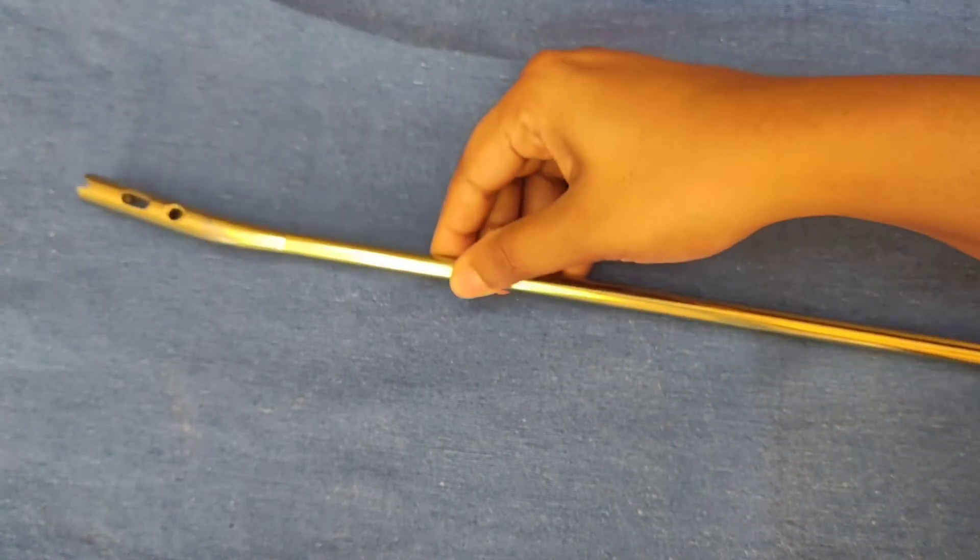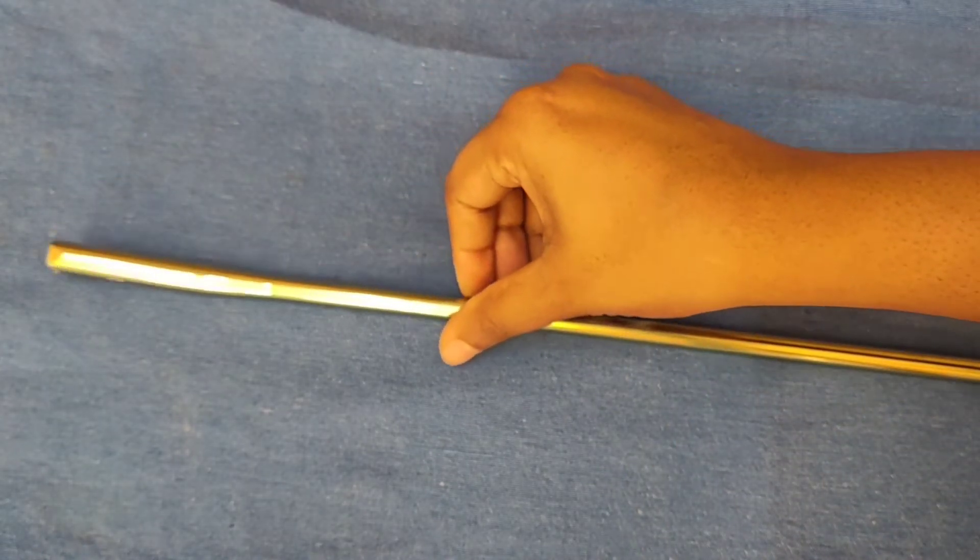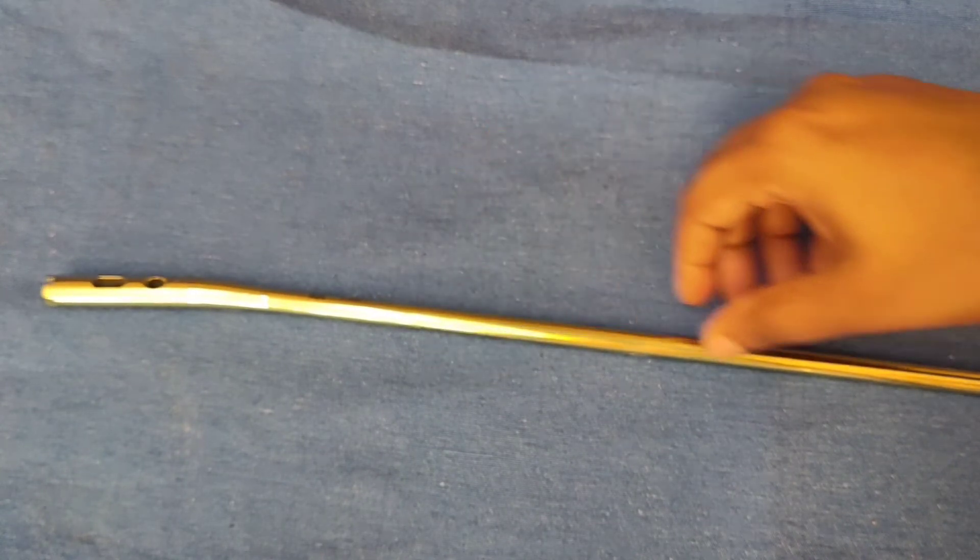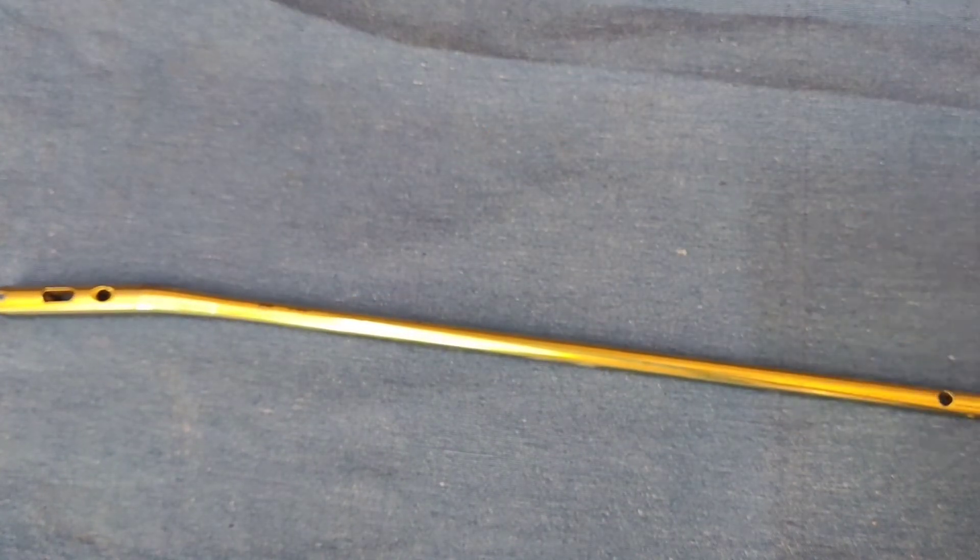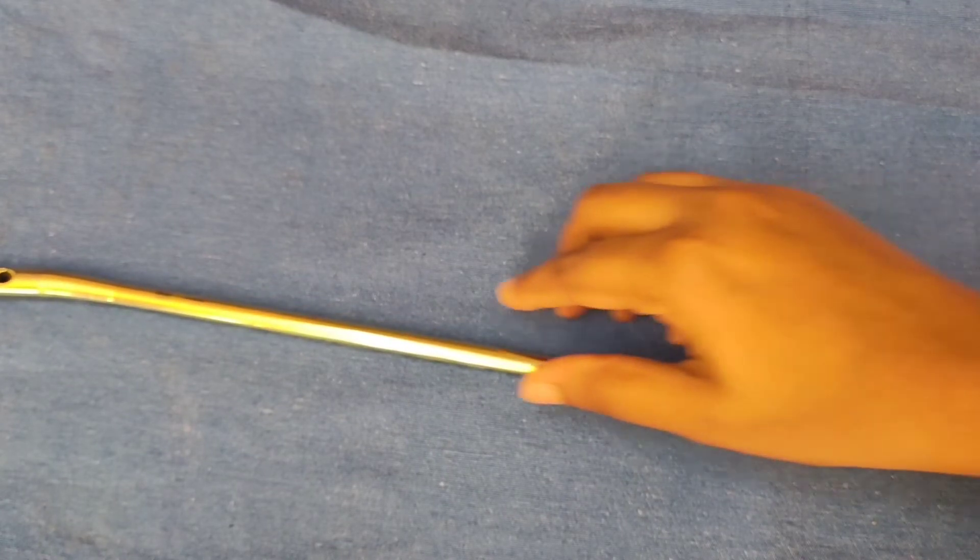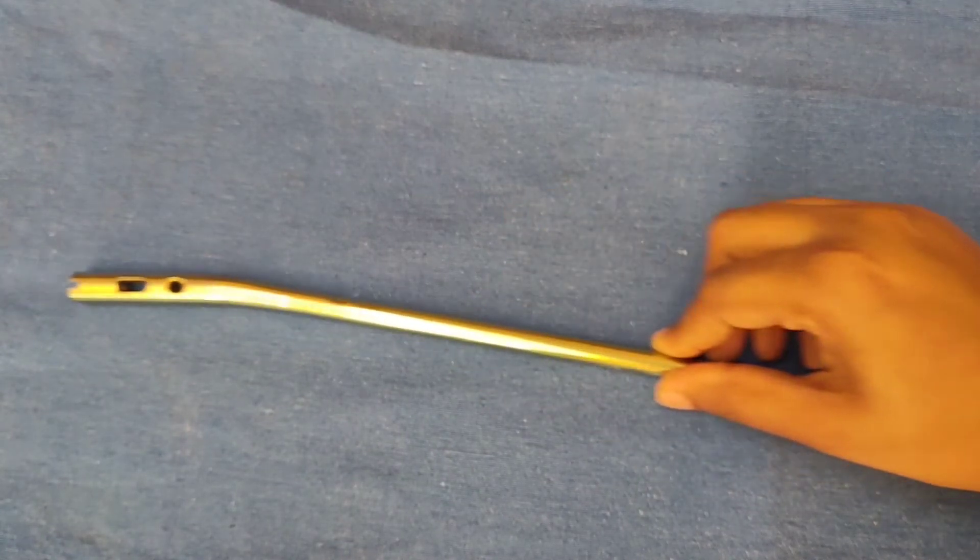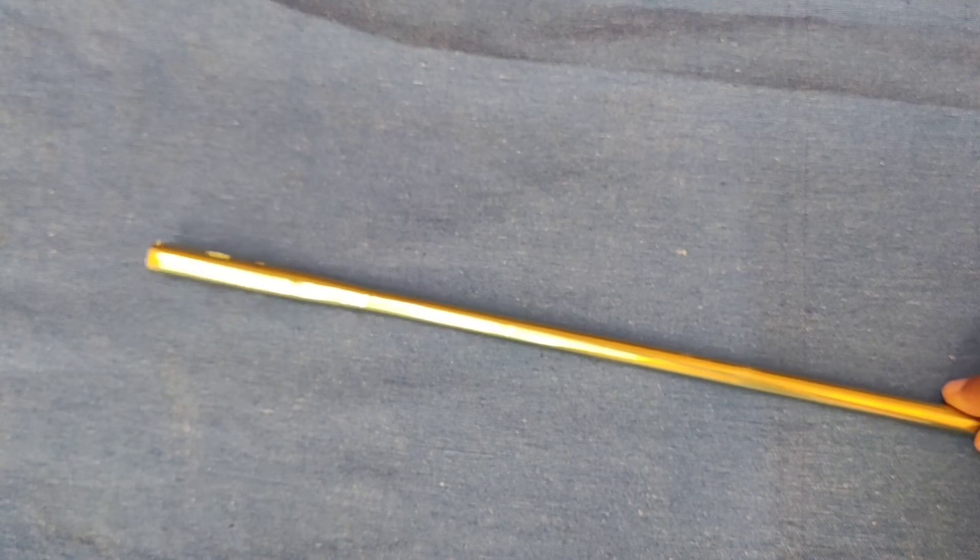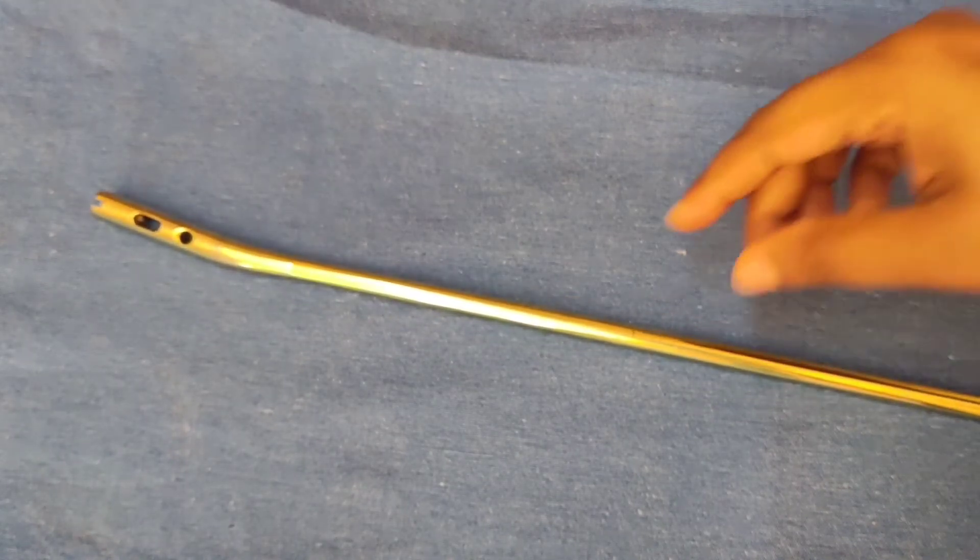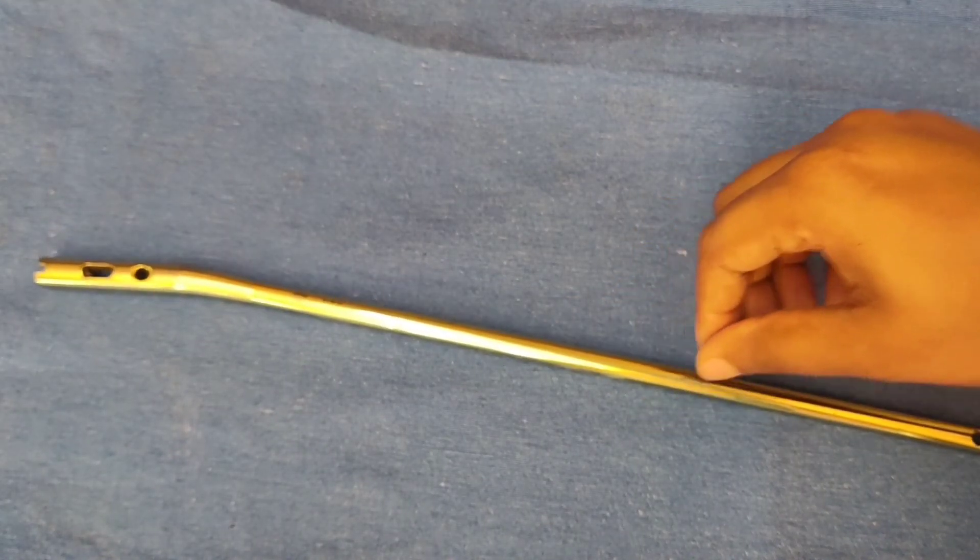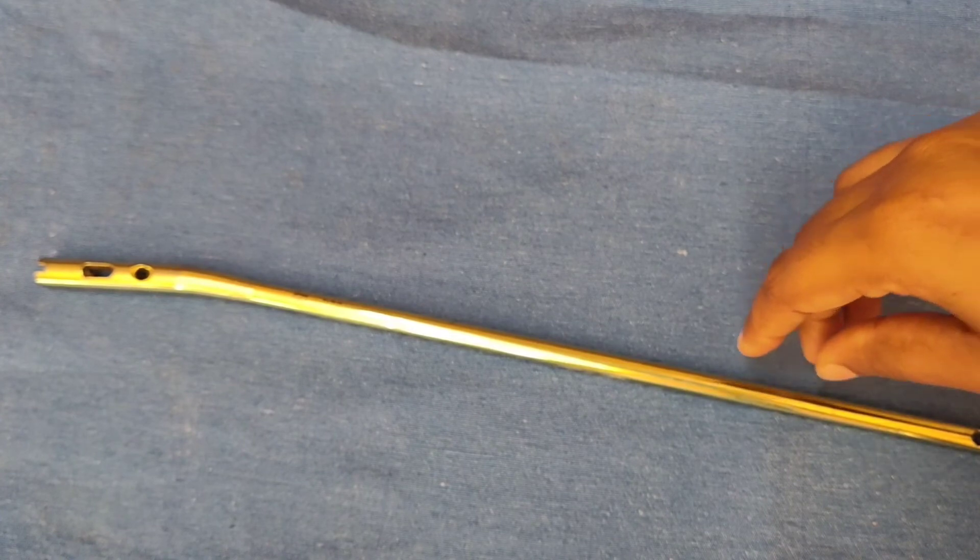The mode of use: it can act as a load sharing implant or a load bearing implant. If only dynamic bolts are applied it acts as a load sharing implant useful in short oblique fractures. If only static bolts are applied it acts as a load bearing implant useful in comminuted fractures.